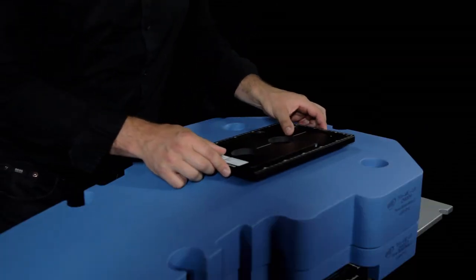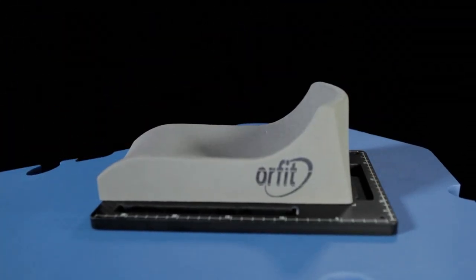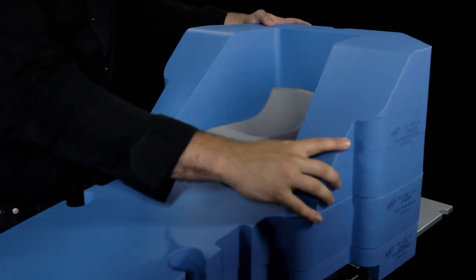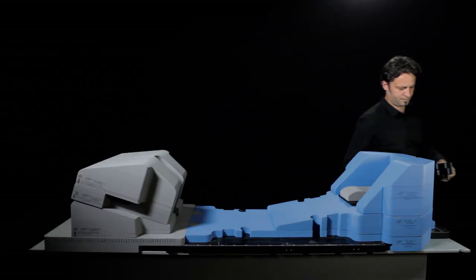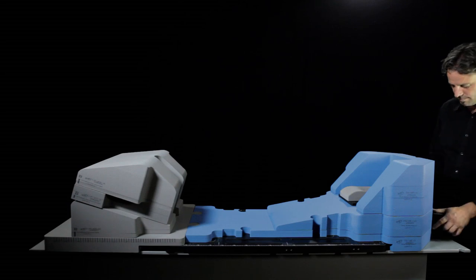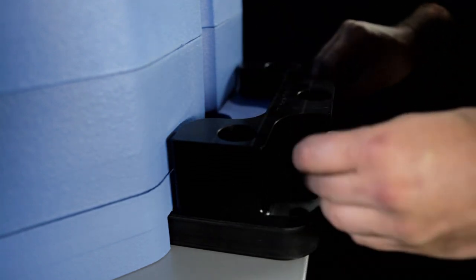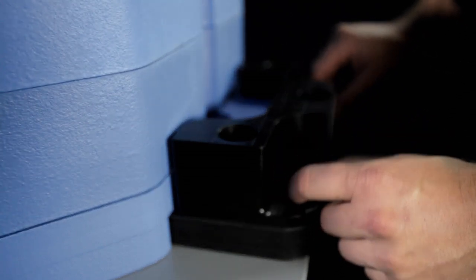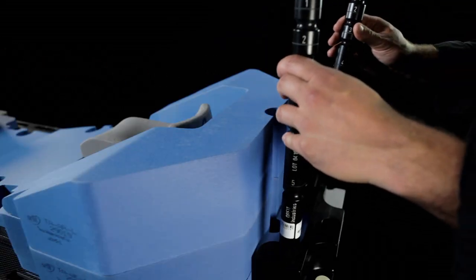To allow the use of thoracic masks, the secondary base plate has to be fixed to the wedge using the bosses underneath the secondary base plate. The head support can also be fixed to this base plate in the same way. To support the arms comfortably, one of two arm supports can be fixed to the wedge. Various grip poles can be used, but to put them in place, you first have to set up the base element of the grip pole set on the base plate. The base unit has pins that fit precisely in the holes on the cranial side of the base plate. These are then tightened to the block using the two bolts supplied. The grip poles can now be fitted into the holes of the support block.